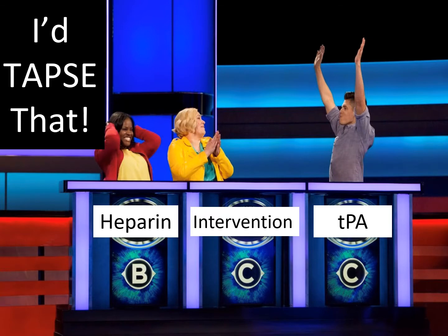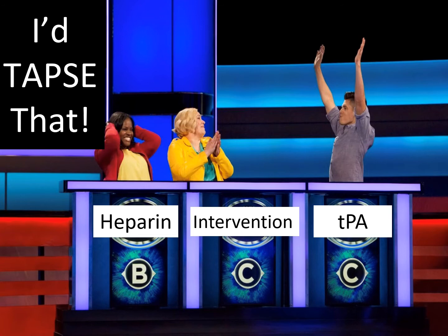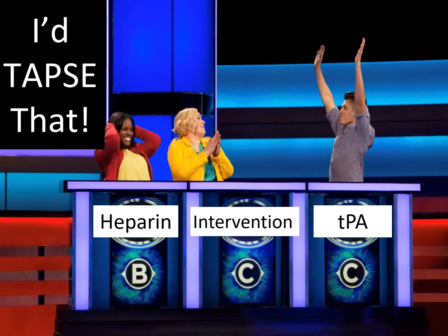Now let's play a game where you apply your bedside ultrasound skills and decide on the best treatment for your PE patients. You can only use each treatment once. Each patient is complaining of chest pain and shortness of breath and has normal oxygen saturations.